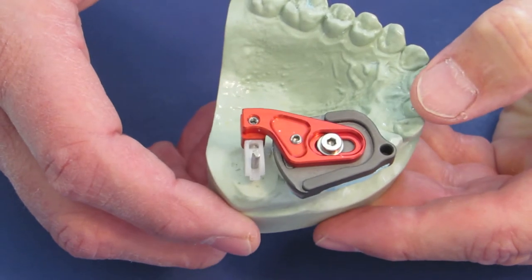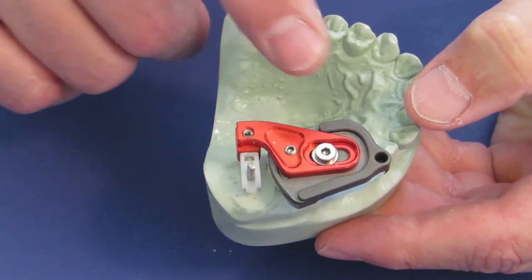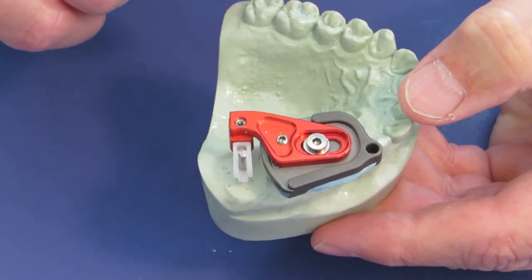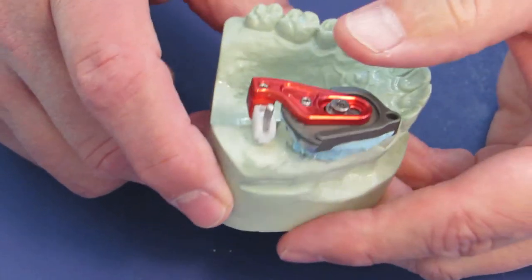It is an excellent tool without having to go to cone beam or anything else, just using the existing and available x-rays that are in your office.